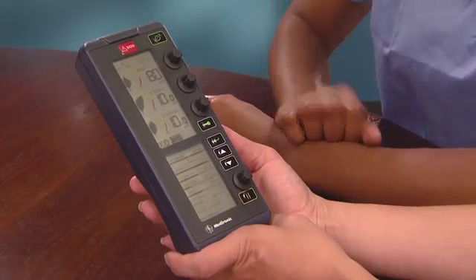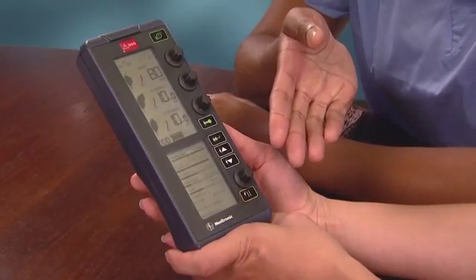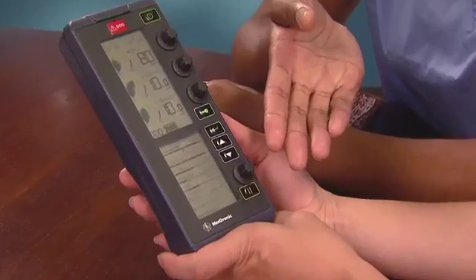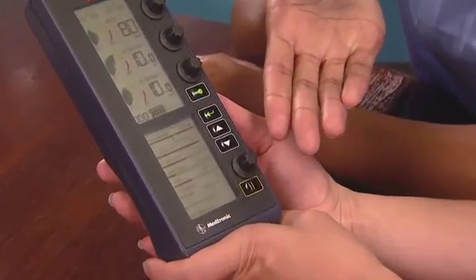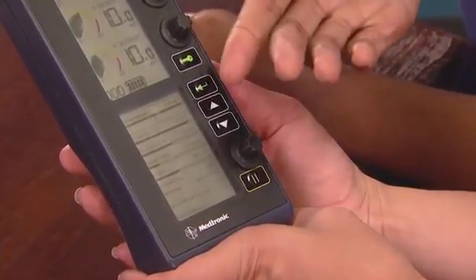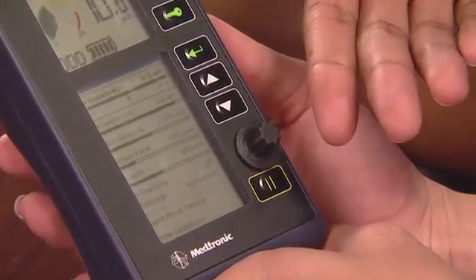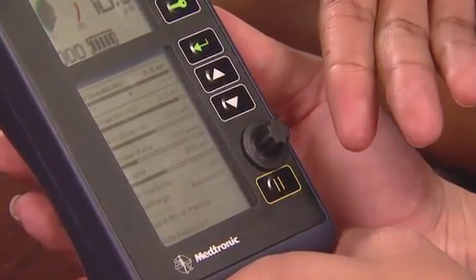We've been talking about all the things we can do with just the three dials. Can you show me what the fourth dial does? The fourth dial is the menu parameters dial, which is used to adjust pacing parameters in the selected mode of pacing therapy. Here's the pacing parameters menu — it is the primary display of the lower screen.